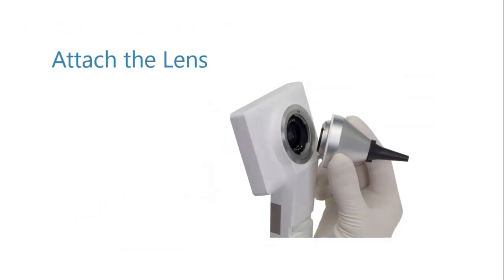Next, you will need to attach the appropriate lens for your appointment. Note that the device will not display an image until a lens is attached. All the lenses attach to the base unit in the same way.